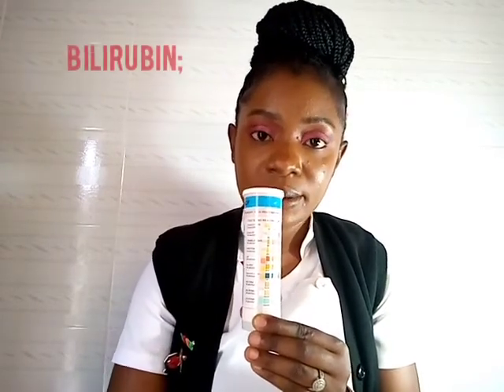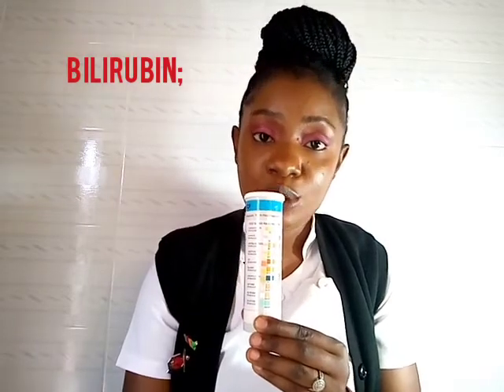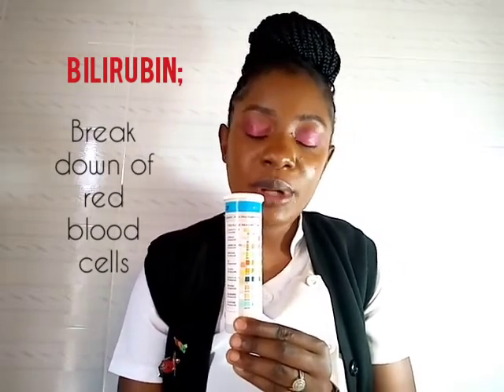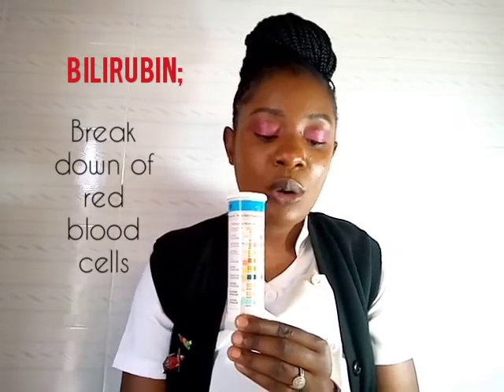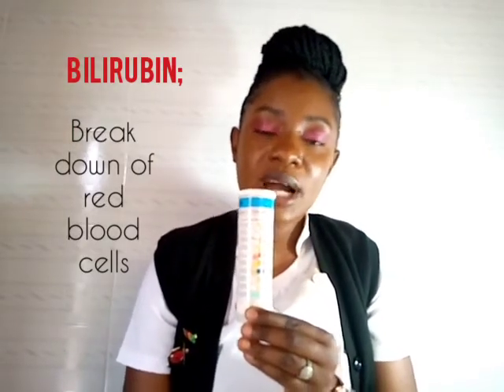We go to bilirubin — you check bilirubin after 45 seconds. Presence of bilirubin in urine indicates the breakdown of red blood cells. This can be due to a problem with the drainage of bile into the gut — such as gallstones — or it may not be effectively removed by the liver, resulting in breakdown of red blood cells in the body.